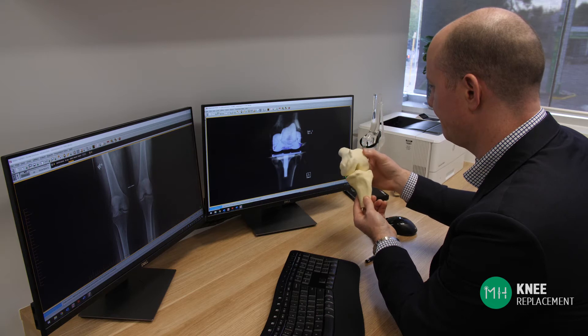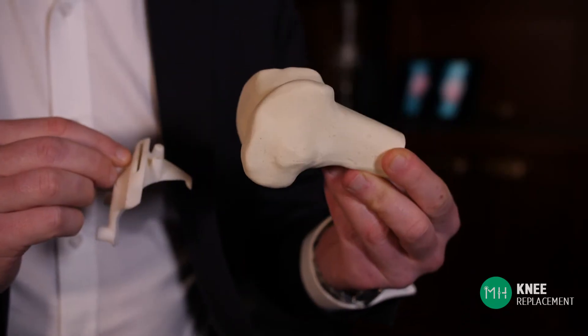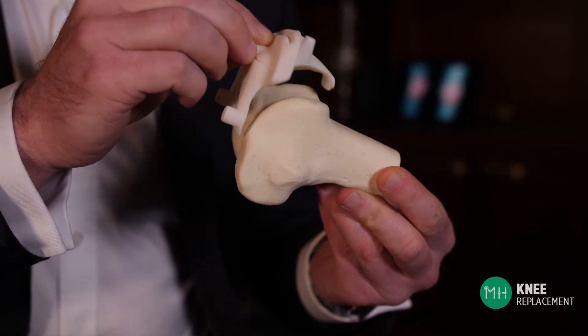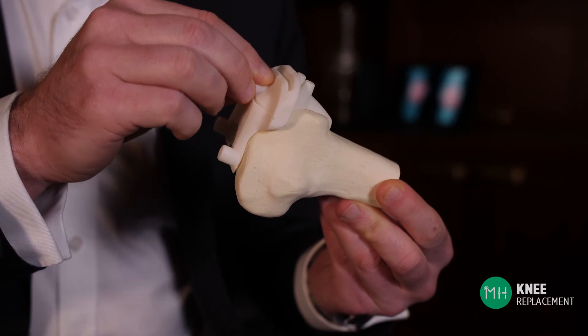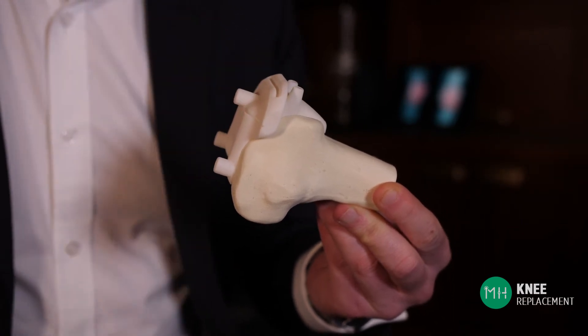Based on the three-dimensional model of your knee, we then build these patient-specific guides. These guides are designed to fit snugly onto the thigh and shin bone, matching every little nook and cranny to fit like a glove.